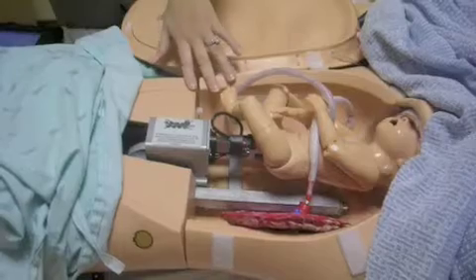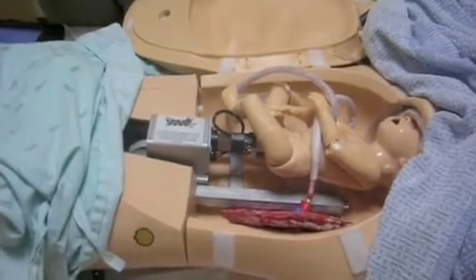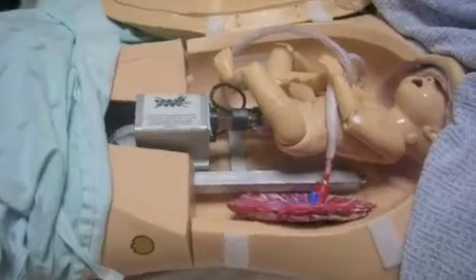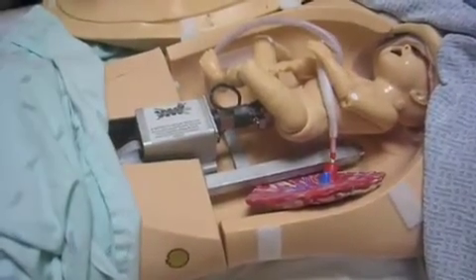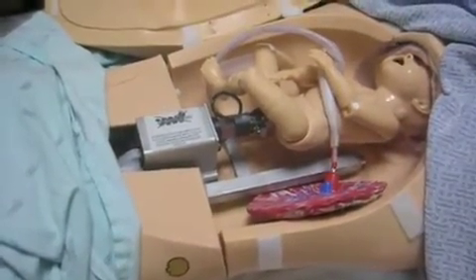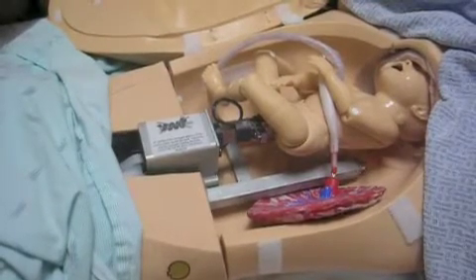She can also do postpartum hemorrhaging as well. So we really have the opportunity with her to do a number of different scenarios that are all crisis scenarios, where we can train our teams to make sure that they know exactly what to do and what procedures to follow when they come across a crisis like this.